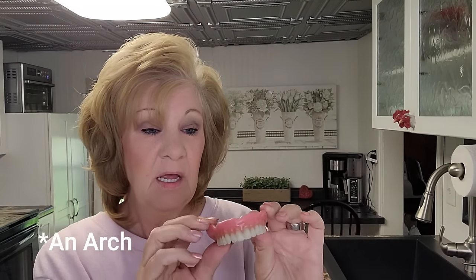He wants everybody to have one that needs one and he's kept the price well under $200. In 2020 this product won a gold Edison Award for the top dental innovation. This is going to be amazing. This is going to change so many people's lives.